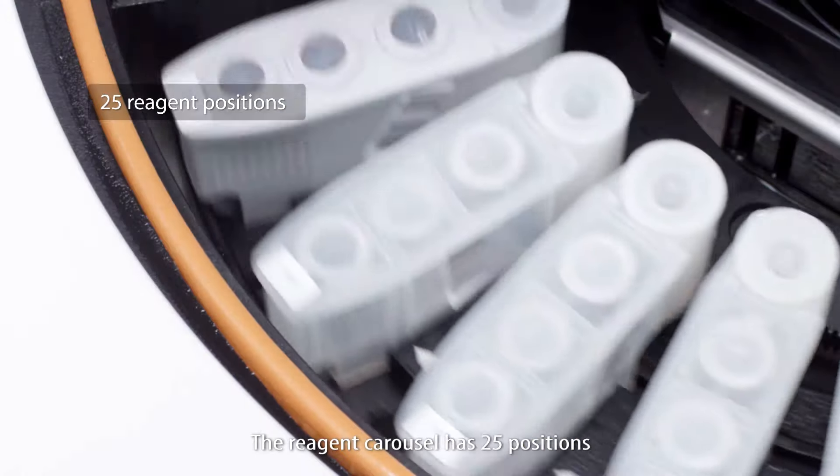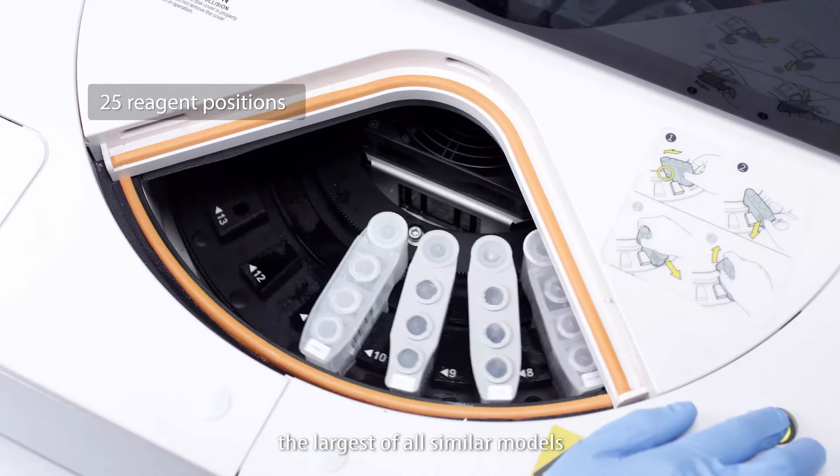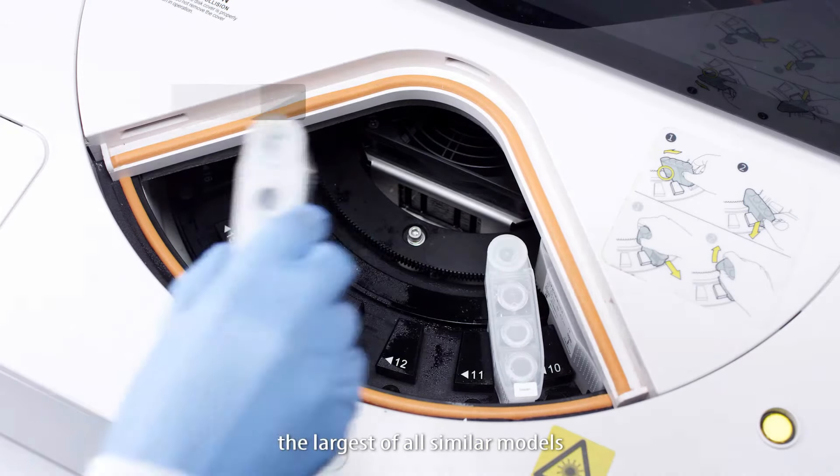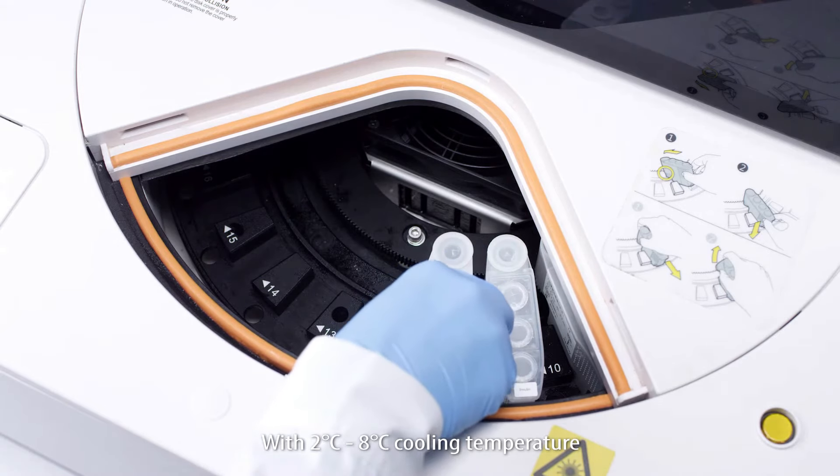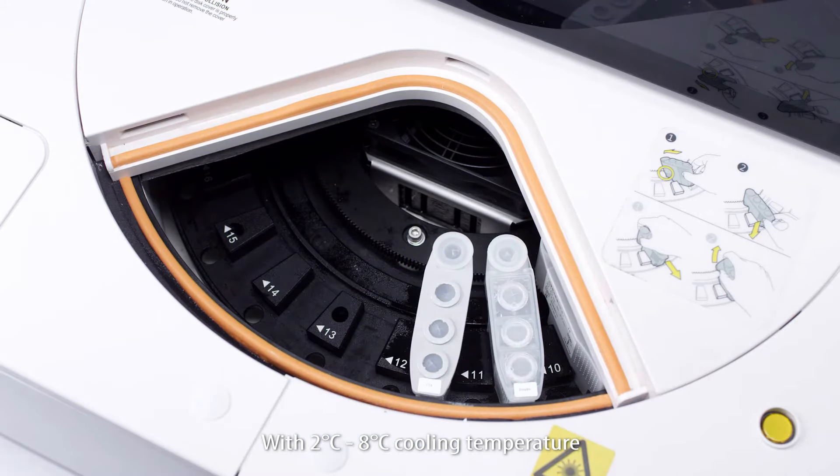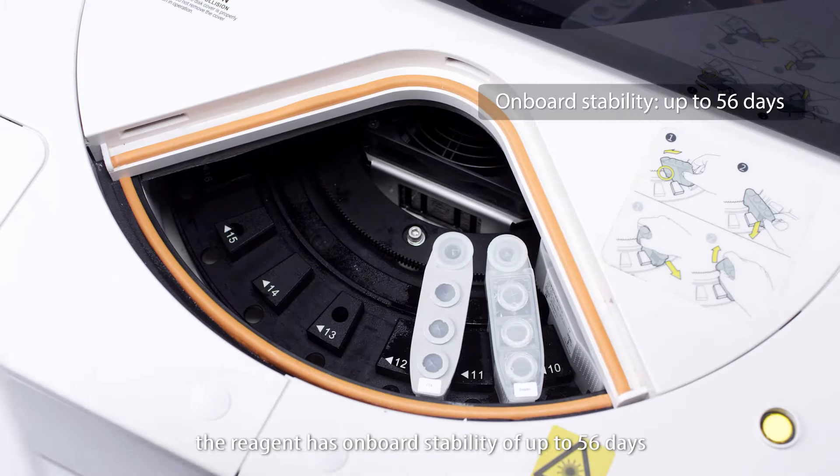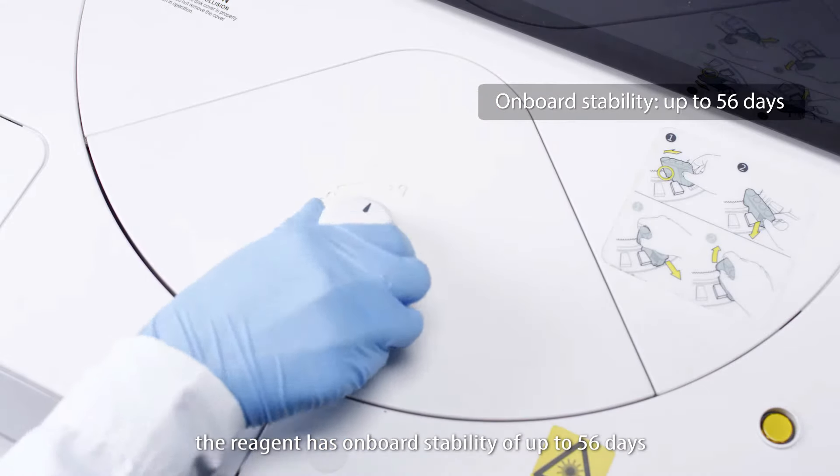The reagent carousel has 25 positions, the largest of all similar models, with 2°C to 8°C cooling temperature. The reagent has onboard stability of up to 56 days.